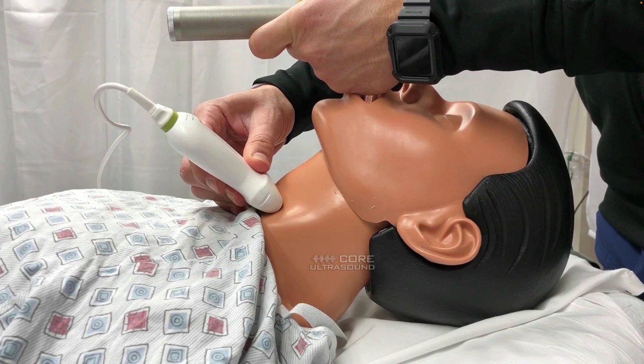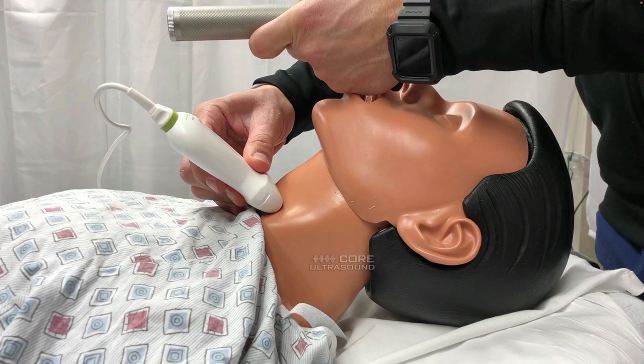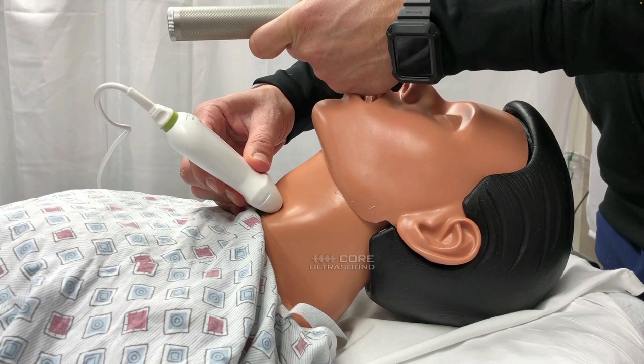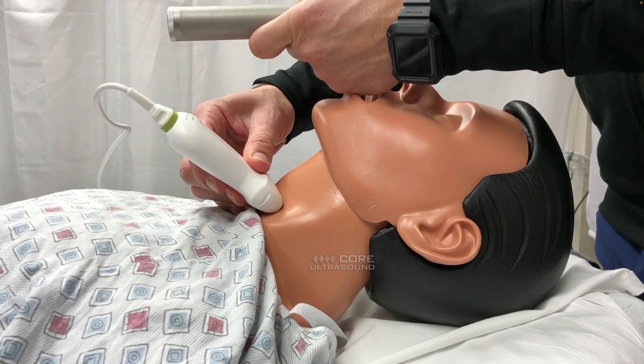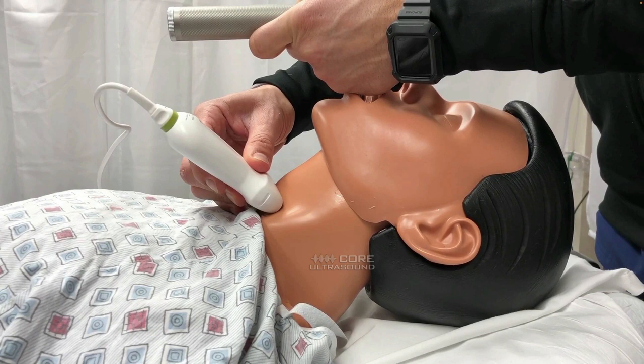One thing you have to make sure is to have a towel in your hand to make sure that if there needs to be some kind of external manipulation of that airway, you're able to take the gel off and get some traction on the neck as you're manipulating that airway externally. It's the same thing as when you are doing a cardiac arrest ultrasound - during pulse checks, I always recommend having a towel ready to go to wipe off the gel so that anybody doing compressions can still do compressions without sliding off the chest.